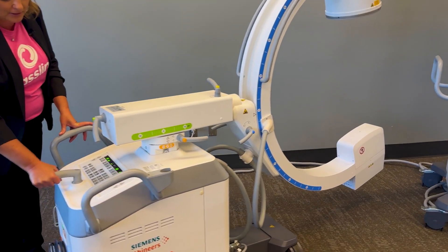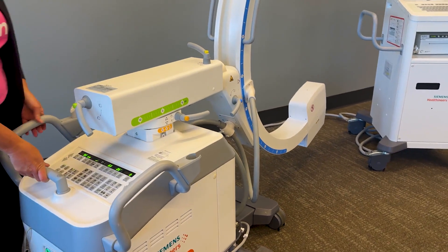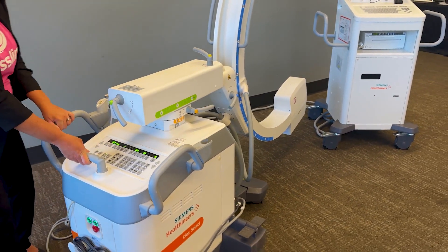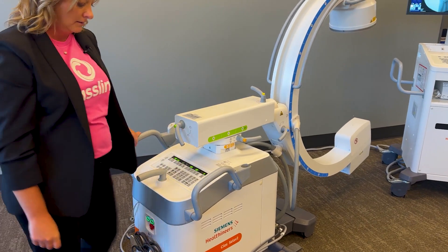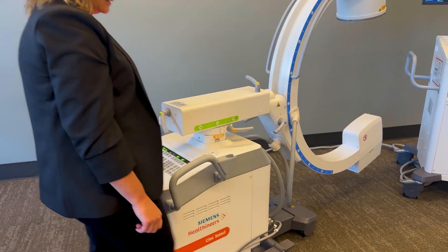This control manages your wheel movements. So you can go lateral, you can go diagonal, or you can go forward. There is also an easy braking system to brake.